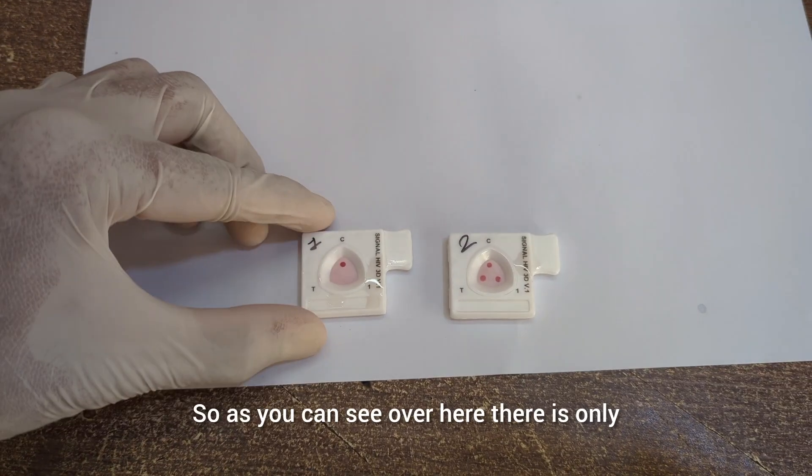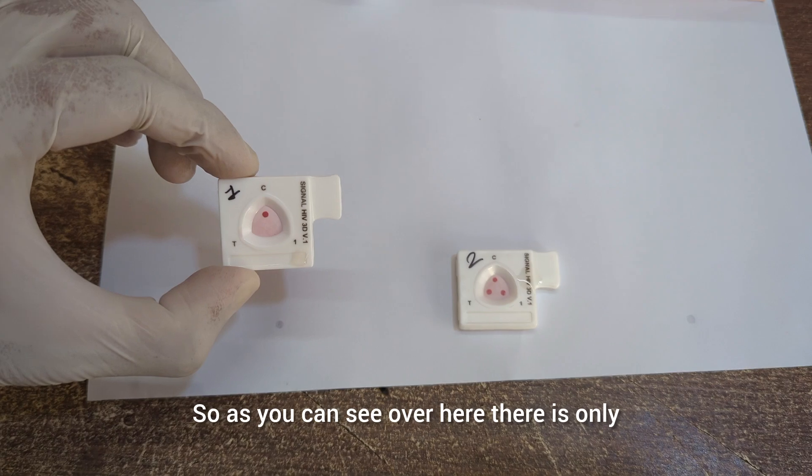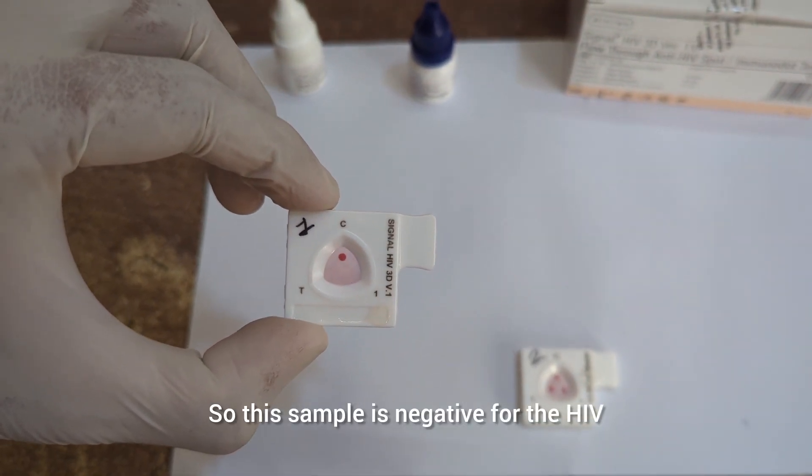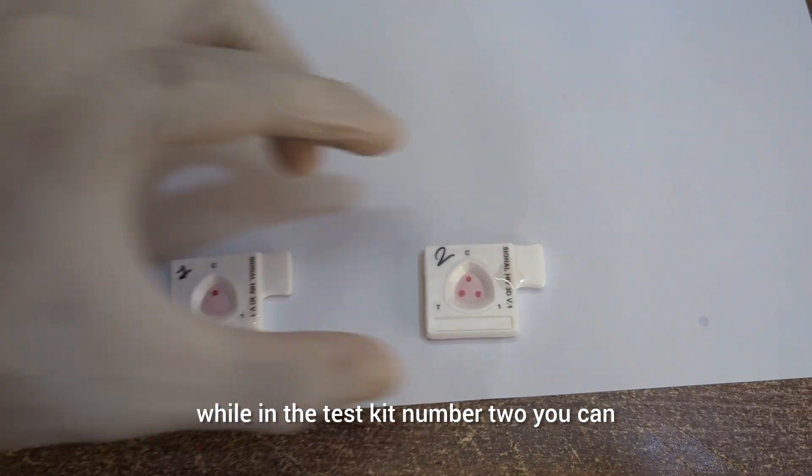After adding the wash buffer, allow it to dry and then read the results immediately. Don't read the results beyond ten minutes.